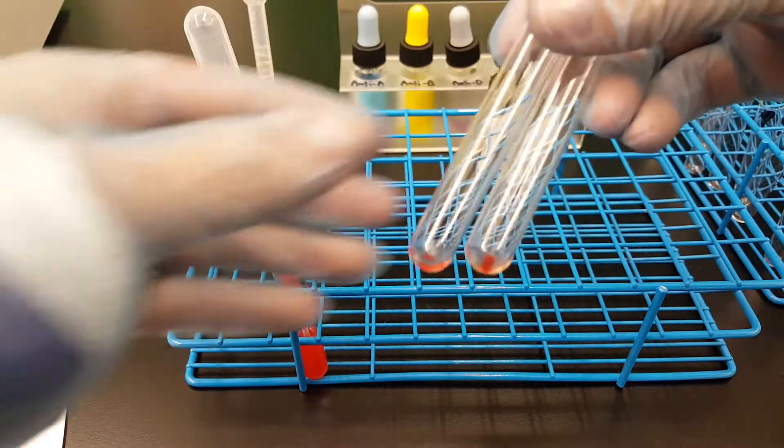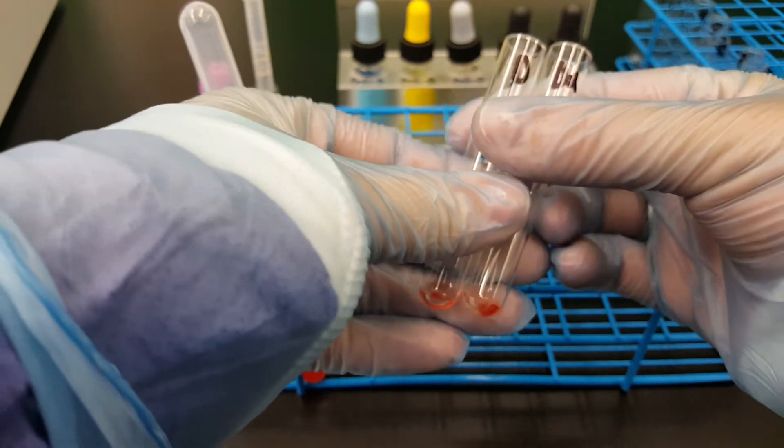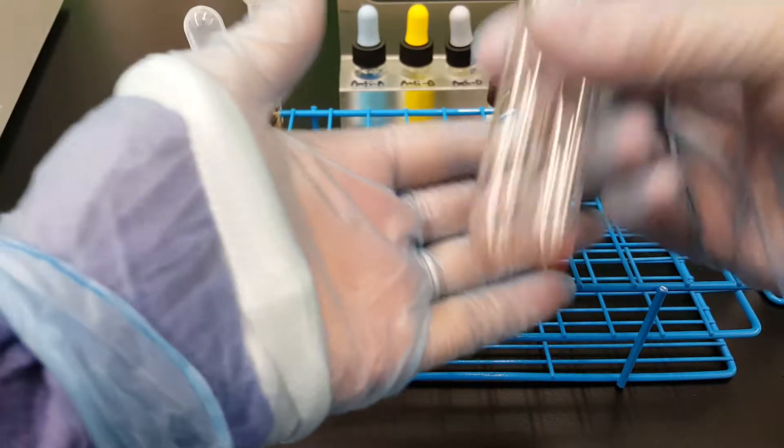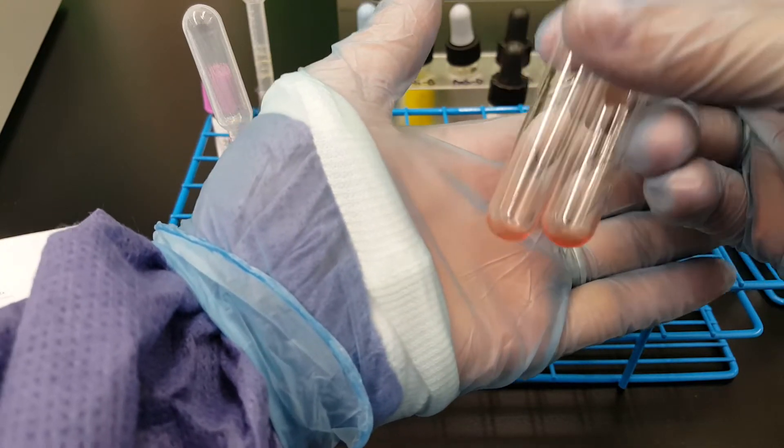So I just got these tubes out of the centrifuge after the 15 seconds of the immediate spin. So we're going to shake them and we're going to see what we get.